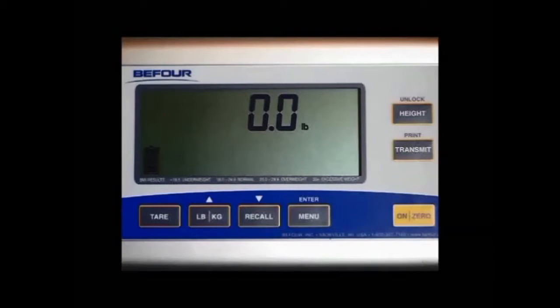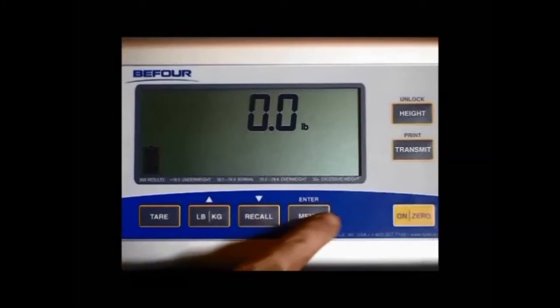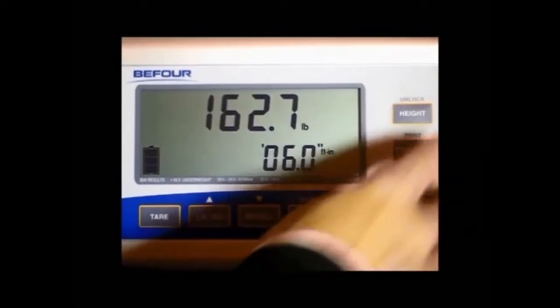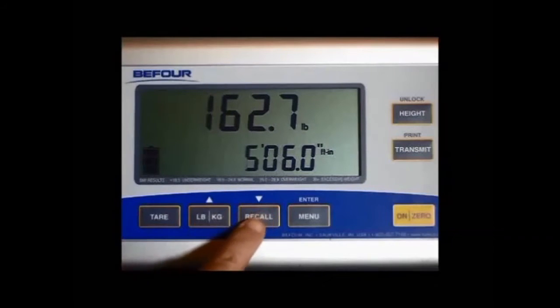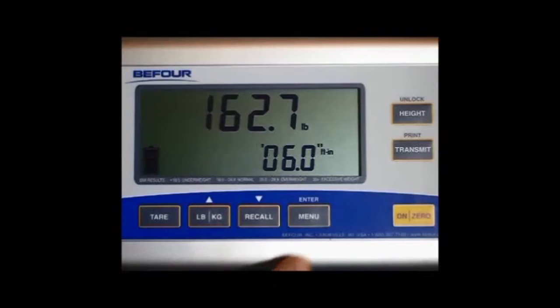Now I will demonstrate the BMI or body mass index. This is done with pressing the height button, the up arrow, the down arrow, and the enter, all located above these 3 buttons. First, we have the patient step on the scale. Once the weight is showing, press height. Press the up arrow to go up in height and the down arrow to go down in height. For this example, our patient's height will read 6 foot 1 inches by pressing the pound kilogram button with the up arrow and hitting enter.